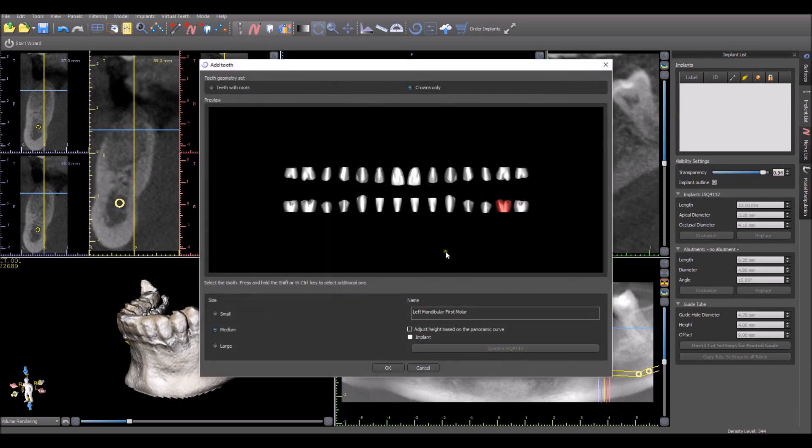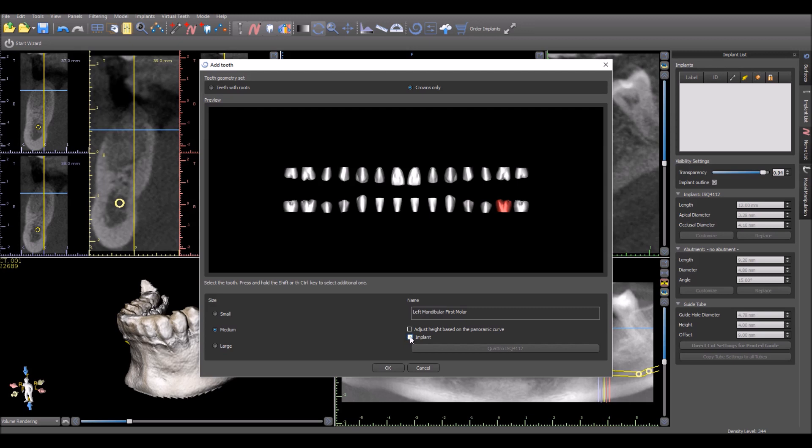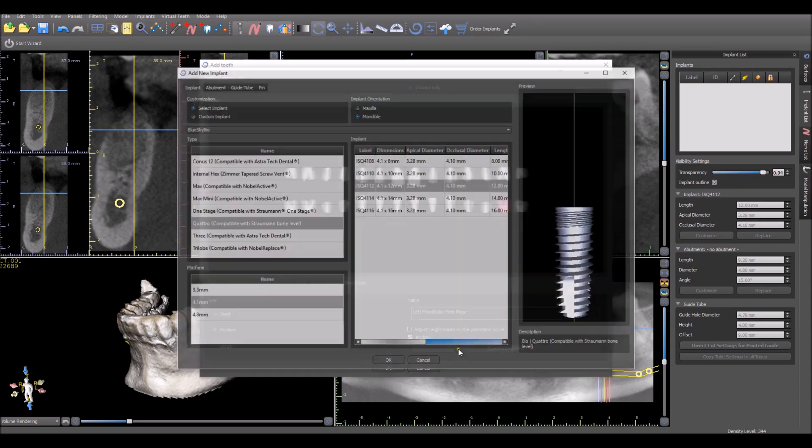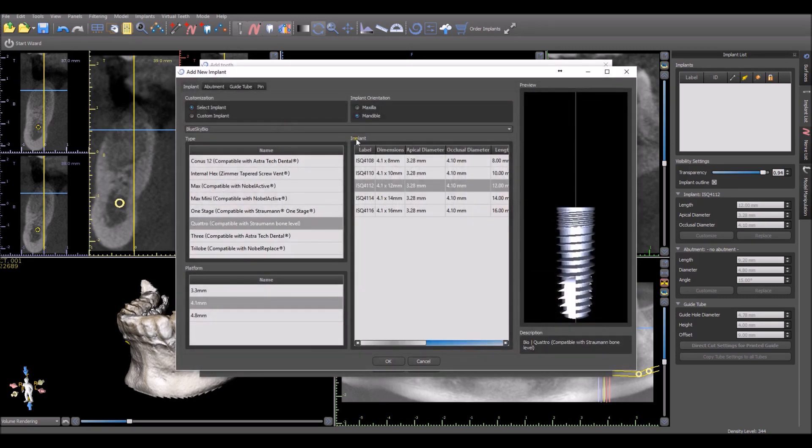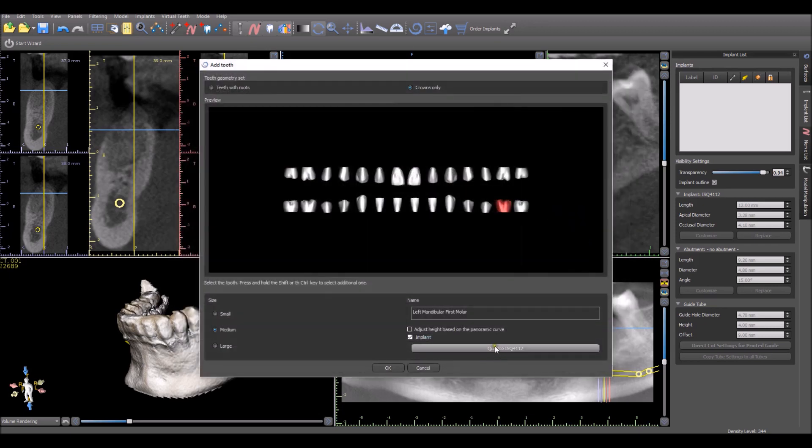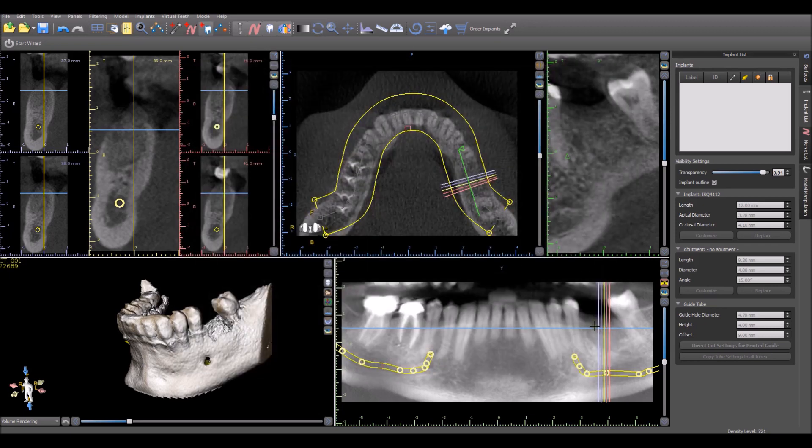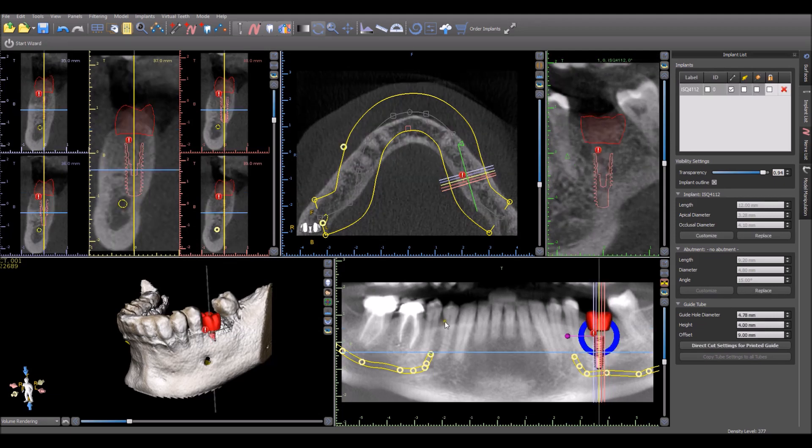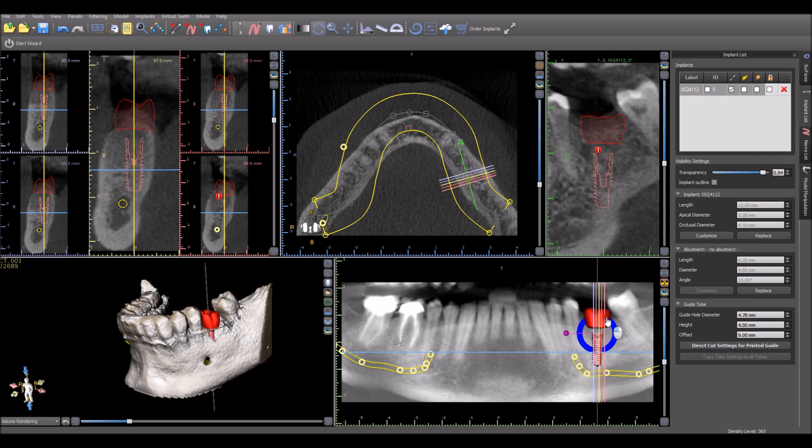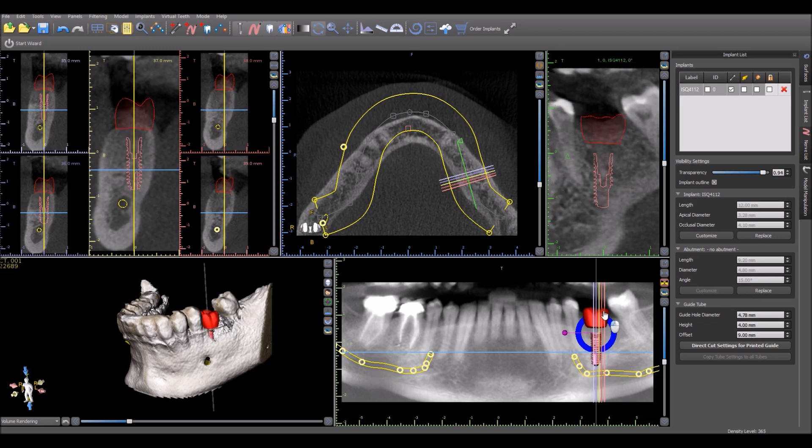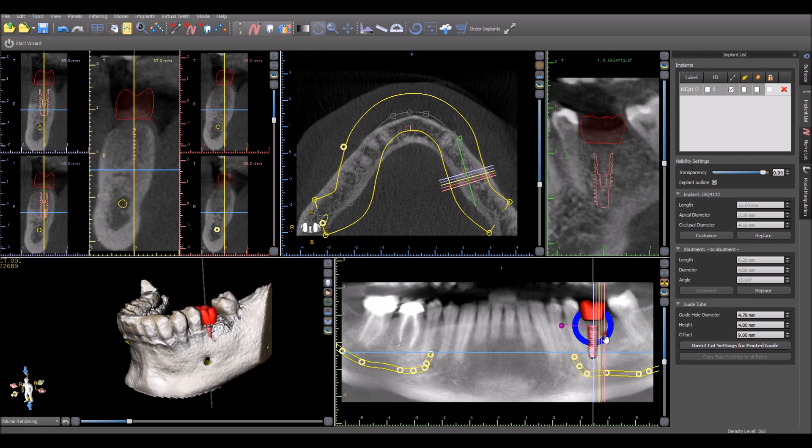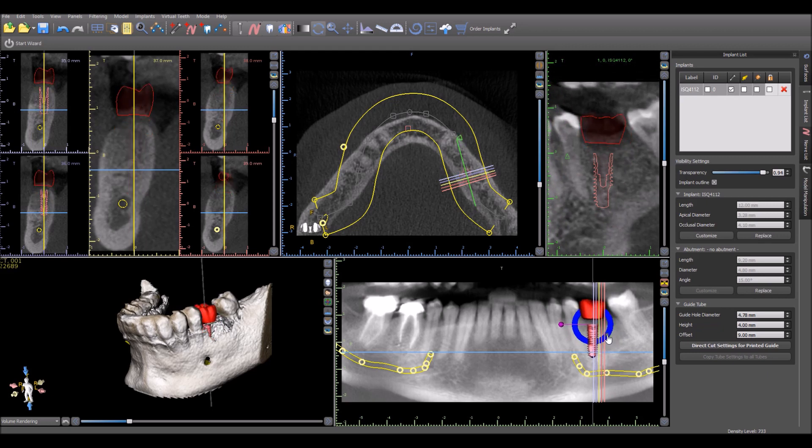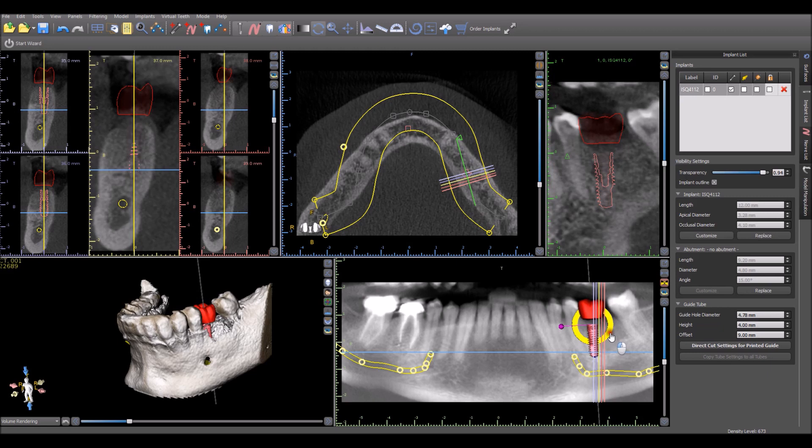The alternative way to start treatment planning is based on a virtual tooth. You could select Add Tooth. Select the relevant tooth or even hold down the Shift key and select multiple teeth. And then here you could directly choose the implant that you want to place. Or you could add it in later on. But if you choose it directly, either the implant that's there or opening up the box and choosing the implant you want, then you press OK. Now you're going to place the crown and the implant is going to come along with it. You can left-click in any view. And you're grabbing and placing the crown, moving the crown, and the implant is coming along with it.